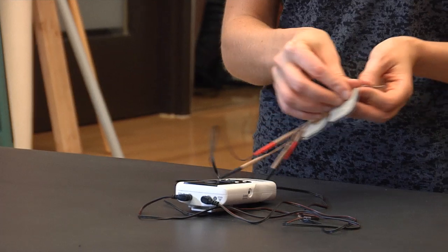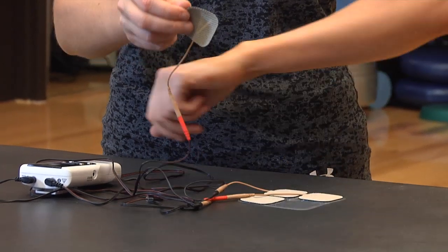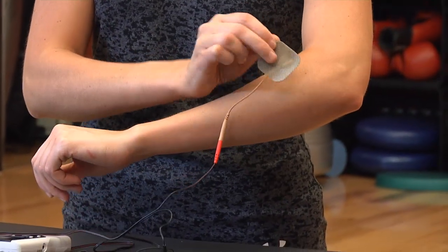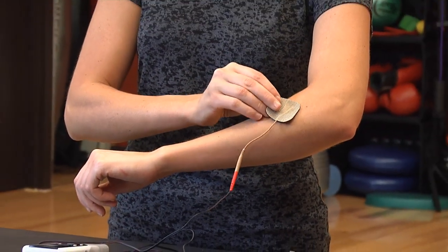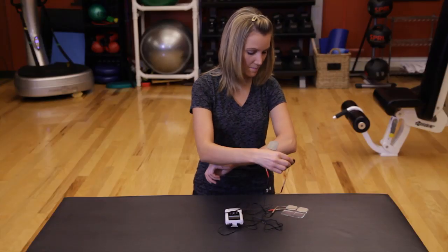Proper placement of the electrodes is important for the most effective treatment. Position the electrodes directly on the skin, as recommended by your physician or therapist. Repositioning may be necessary to enhance a successful treatment.